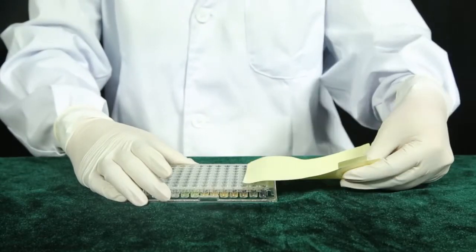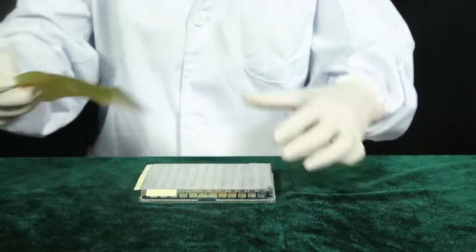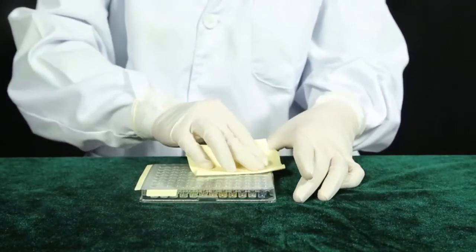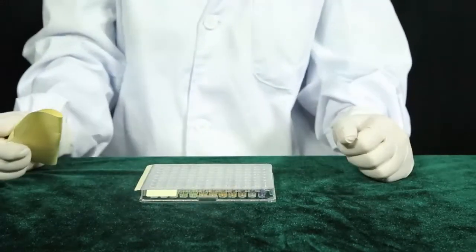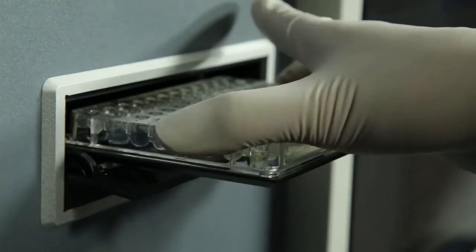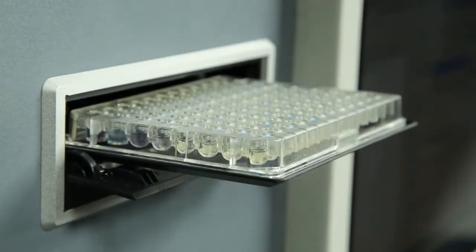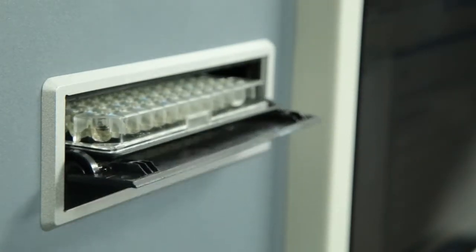Step 3. Cover the test card with its plastic film. Lay a wet cloth on the test card and incubate it for 24 to 72 hours at 35 to 37 degrees Celsius. Step 4. Observe it every day. If well F12, the positive control well, turns turbid, read the test card by DL962.